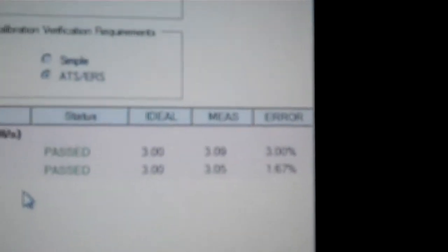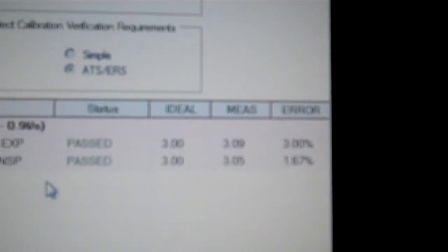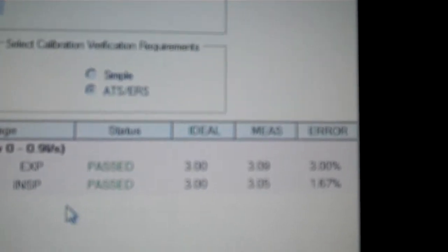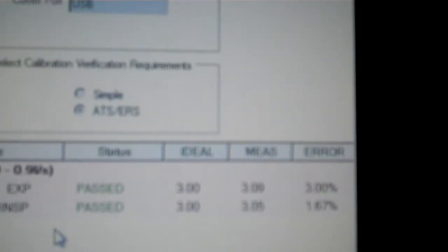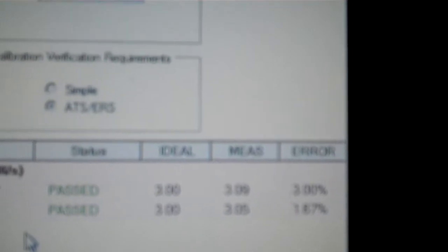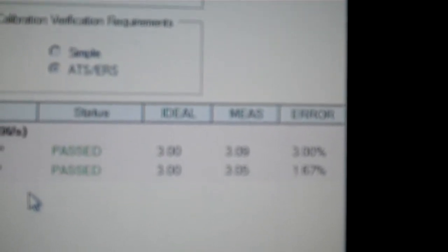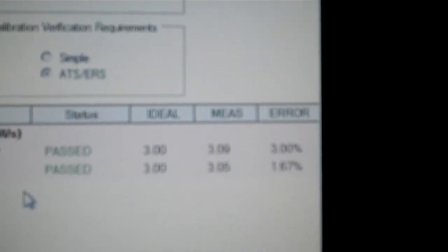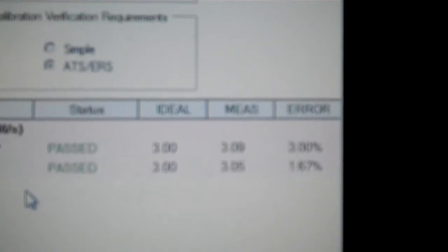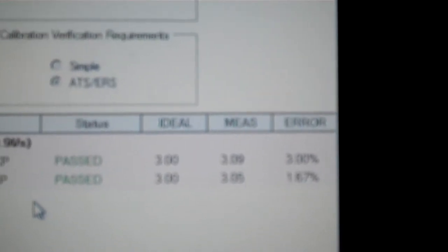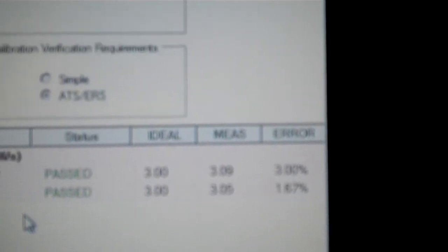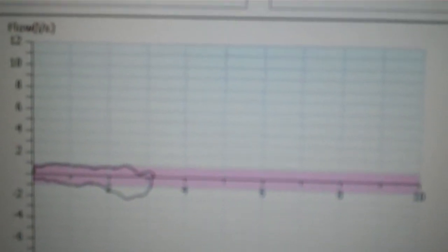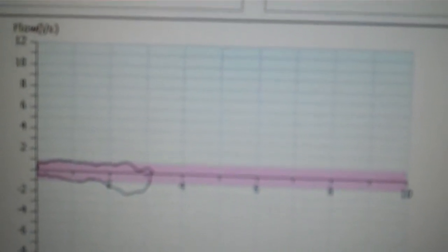OK, it is analyzing. And what it is noticing here is that I have passed the first expiratory and inspiratory. I will have to repeat this three times on the low band. So I will do it three times in this pink band, both expiratory and inspiratory.